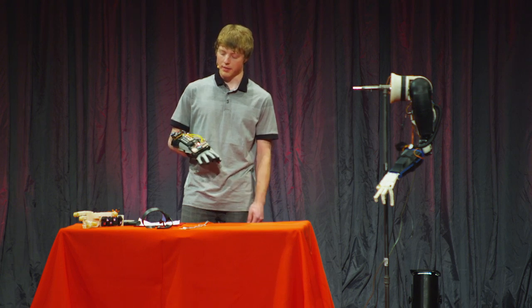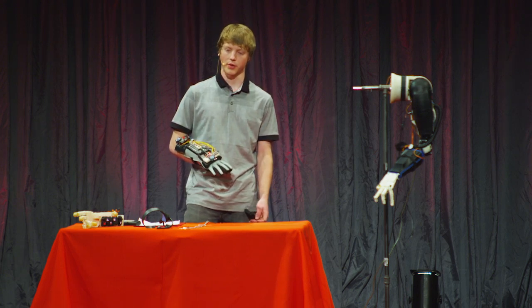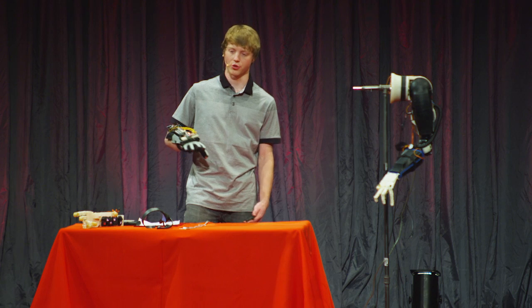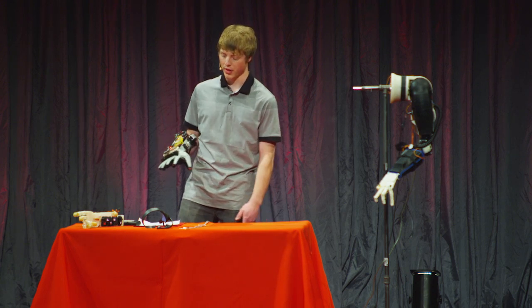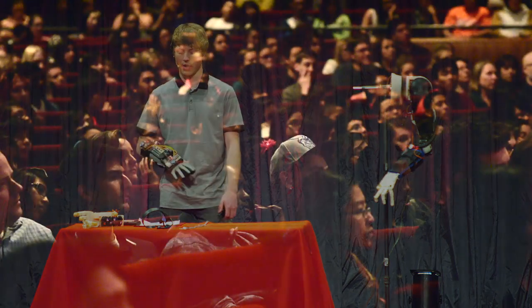I had to put a feedback system on the motor to accurately control the angle, which also made coding simpler and really made it all come together.